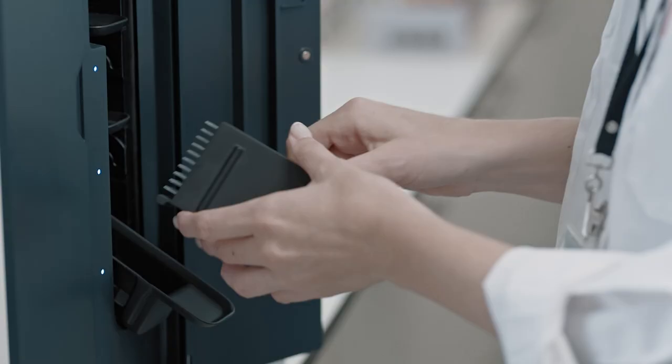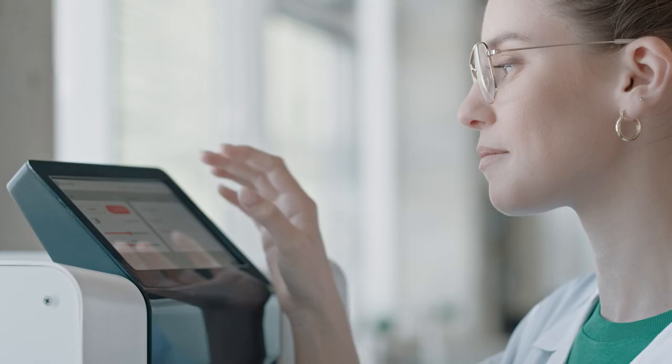Scopio's solutions for peripheral blood analysis and digital cytology are already improving workflows and transforming patient care.